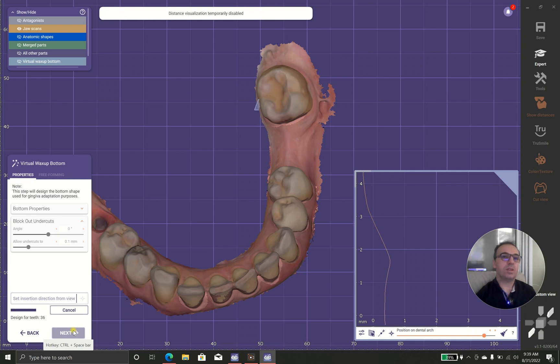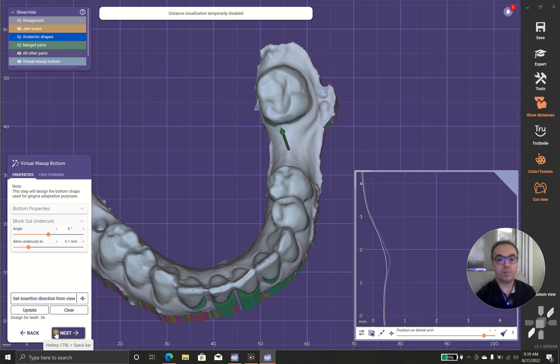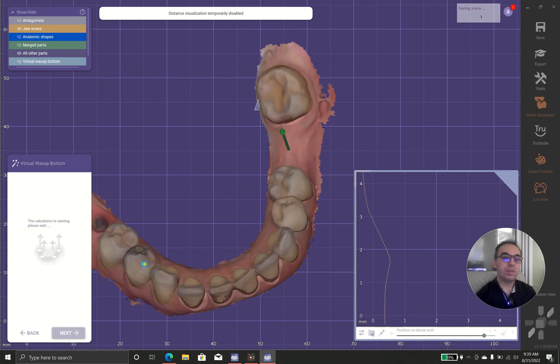Maybe sometimes you need more retention, you will use undercuts as your weapon. And maybe you use no undercuts.